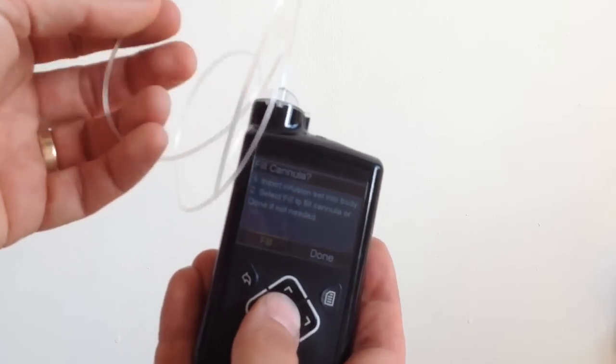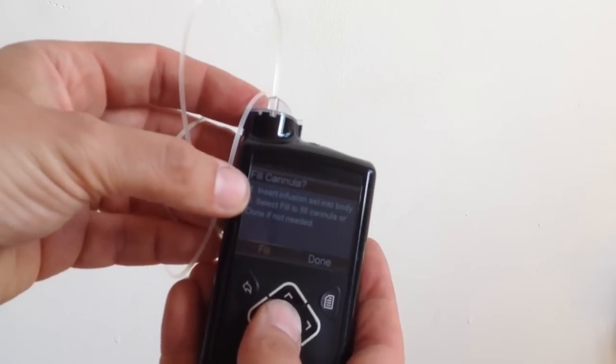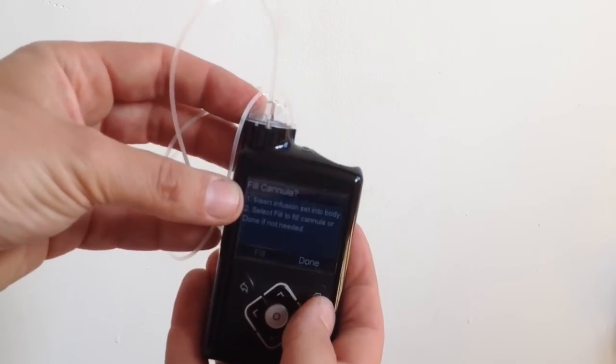And next that. So now, I need to insert the infusion set into my body.